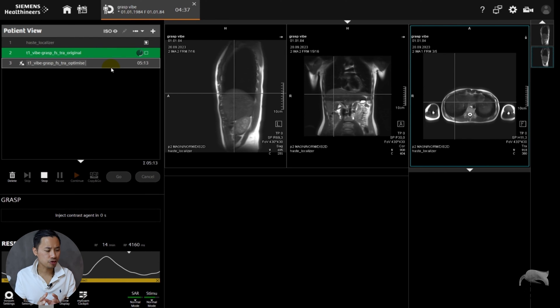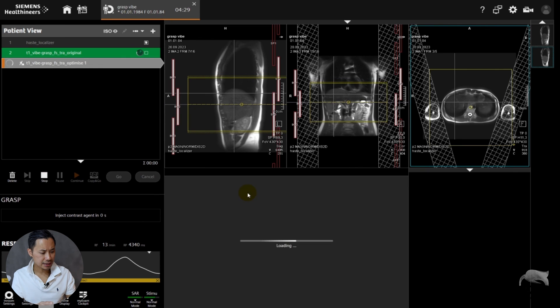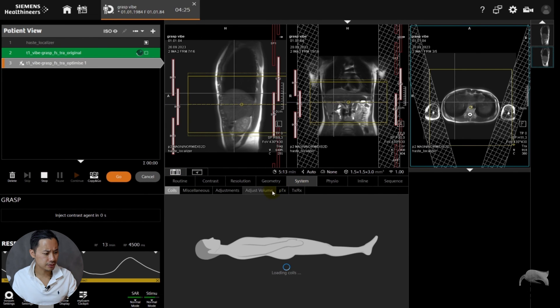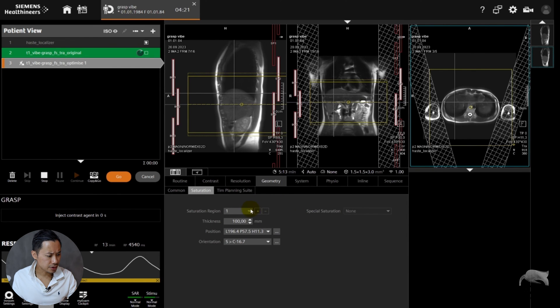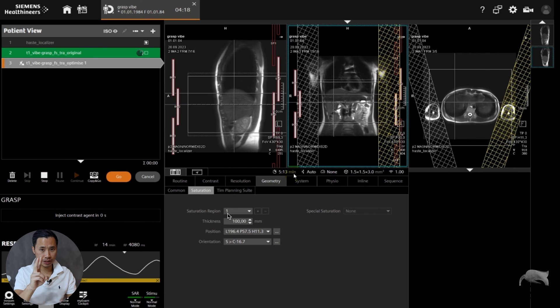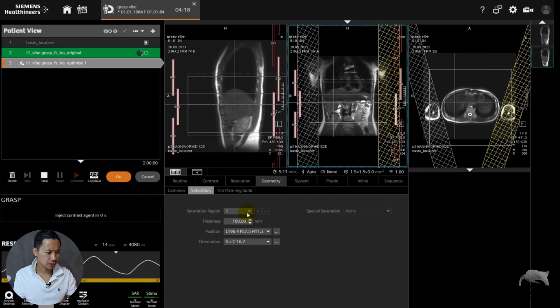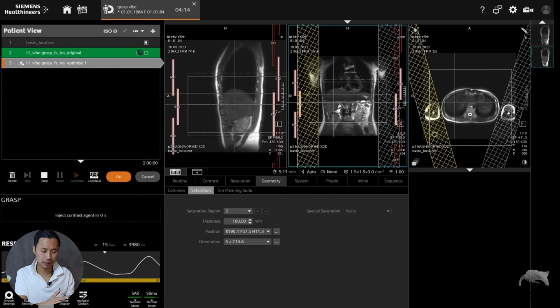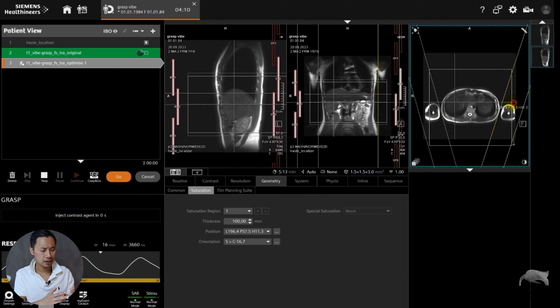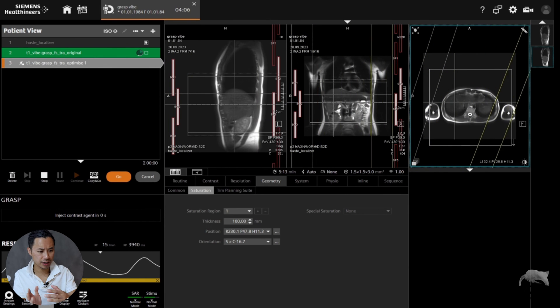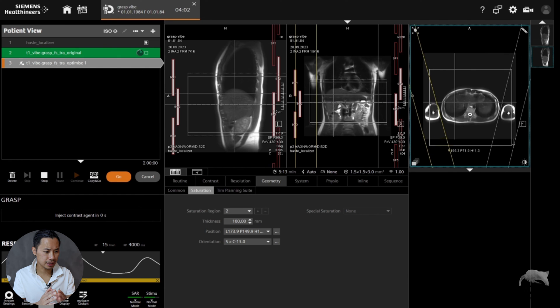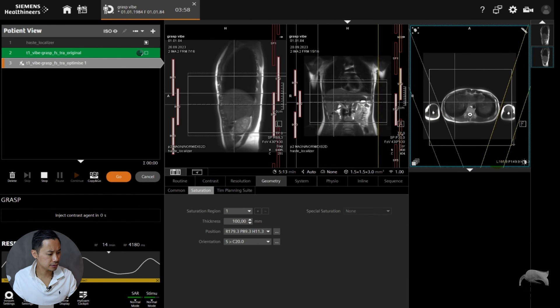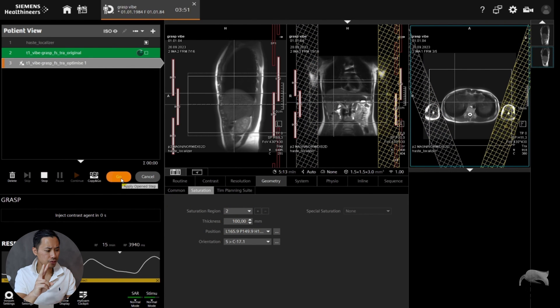We're going to do another one right here. I will try to optimize it and find out if I could eliminate the streaking artifacts. Like I told you in the beginning, let's look at the saturation bands. I think the saturation bands can minimize the artifacts. We go to the geometry saturation. As you can see, there's a little bit confusing. Why is saturation region one there when there are two sats, one and two? One is over here, it should be on the liver side maybe, and the two is closest to the liver. I want the one to be the closest to the liver because that's where my interest area is and that's also the sat band which works first. That's why I tried to exchange that. Just put two over to the left and the number one next to the liver.